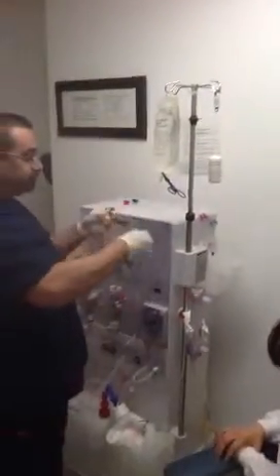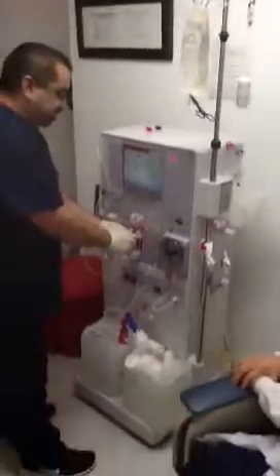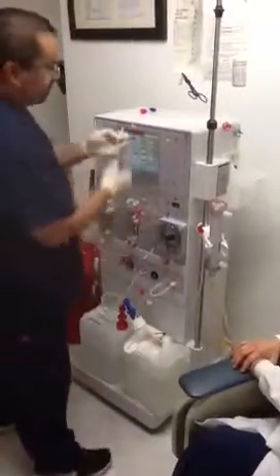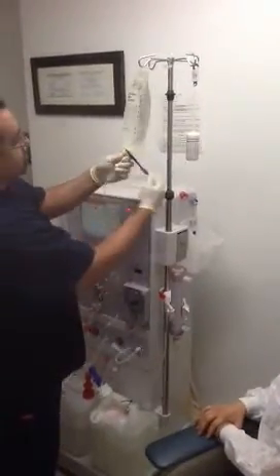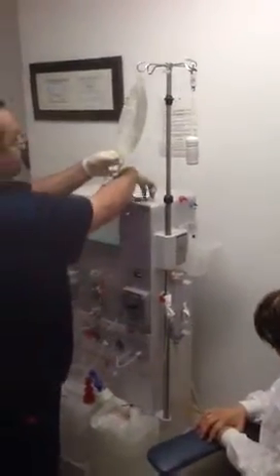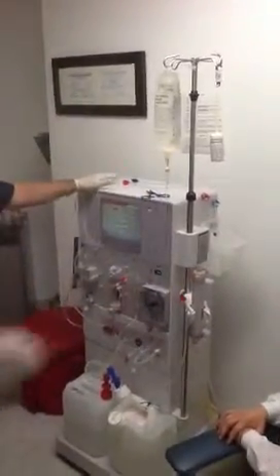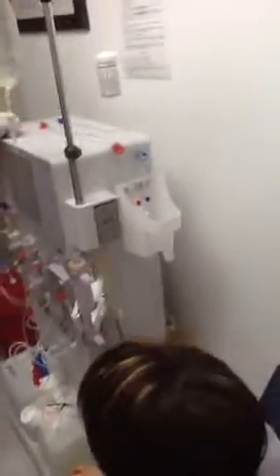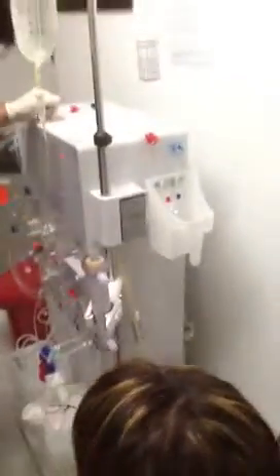Get your saline line. You're going to connect to the T-line first, then you're going to spike your saline. Follow the saline through onto the arterial bloodline to the patient. It's in the bucket — it has that little cap. It'll still lead through it.